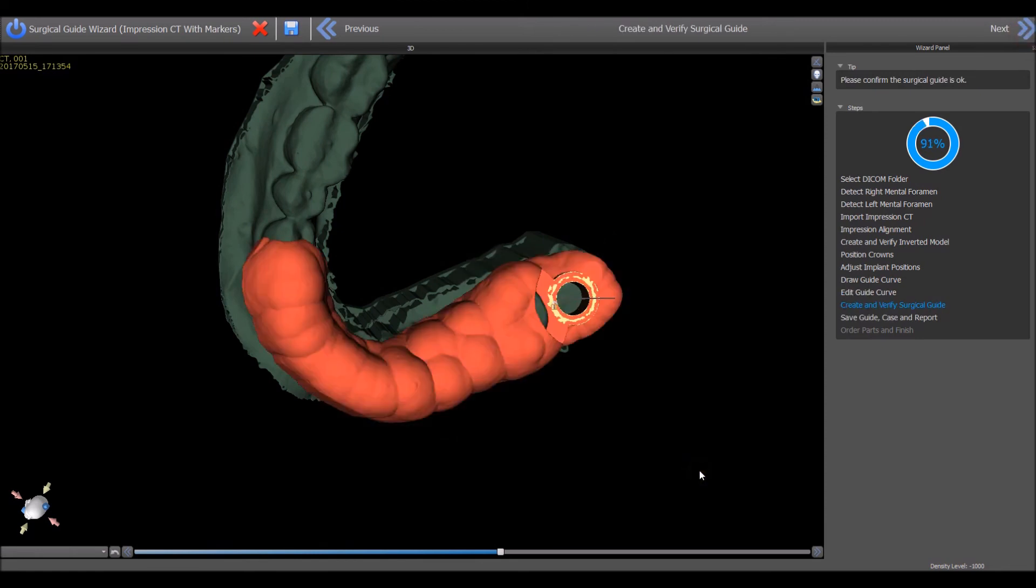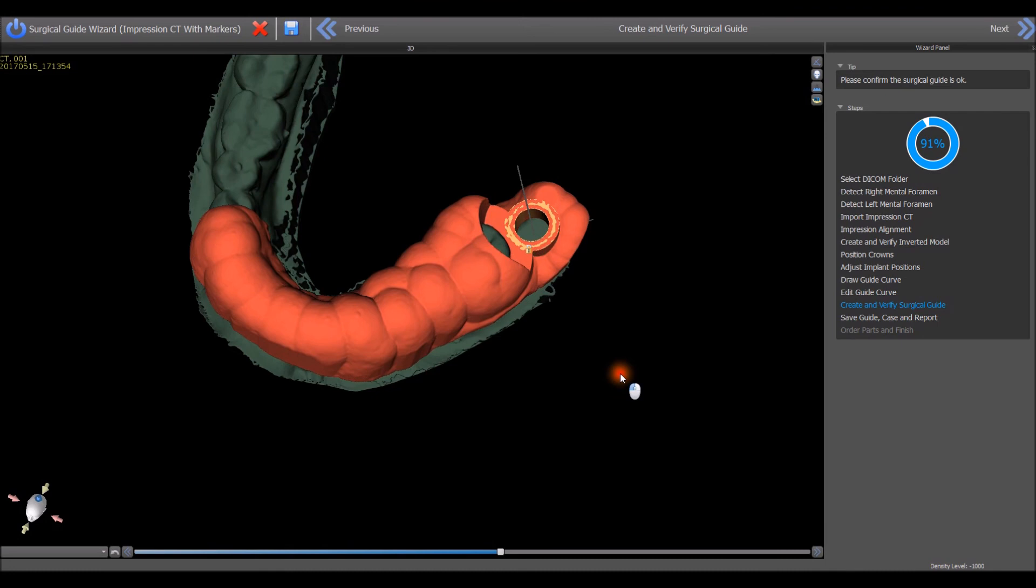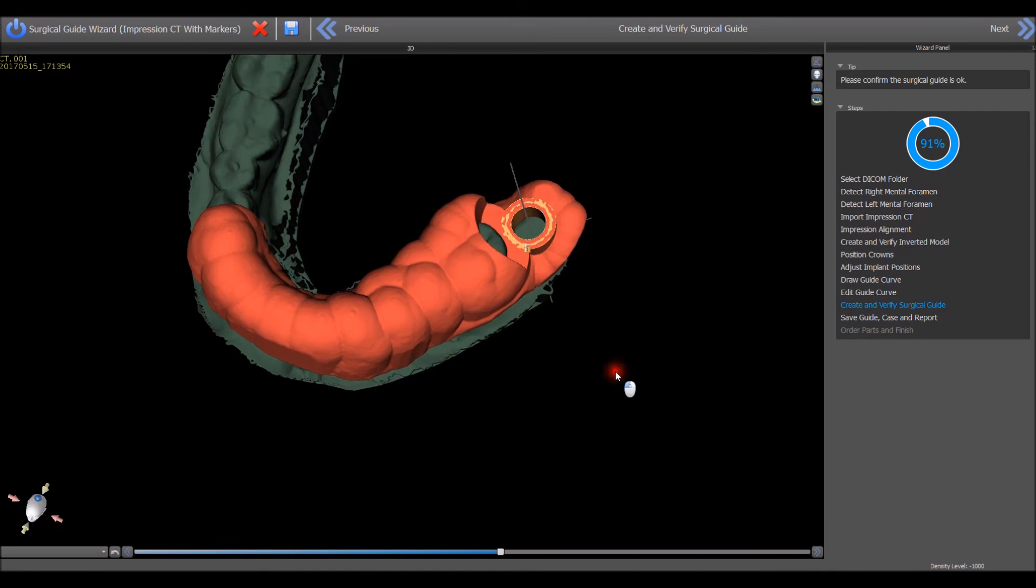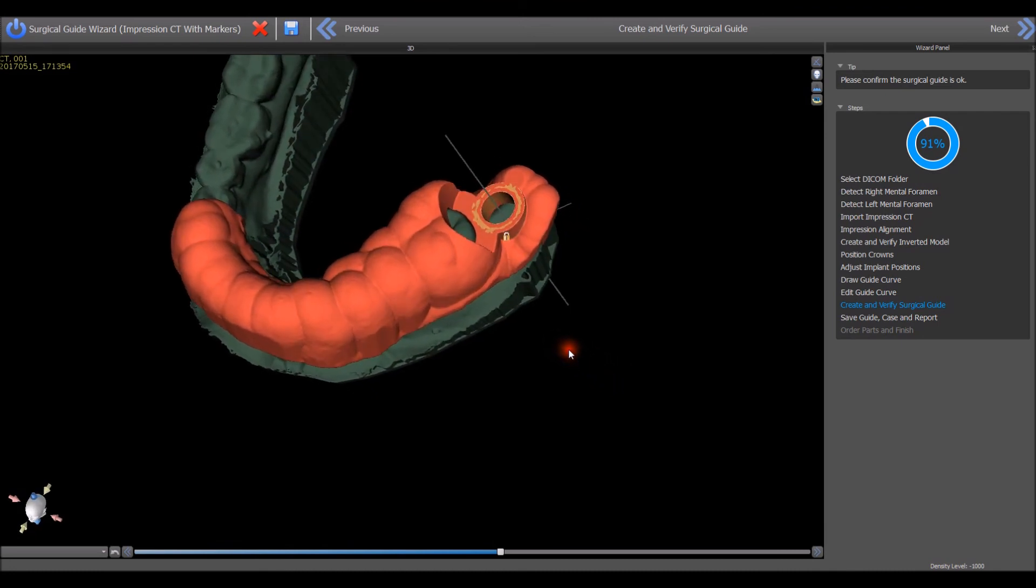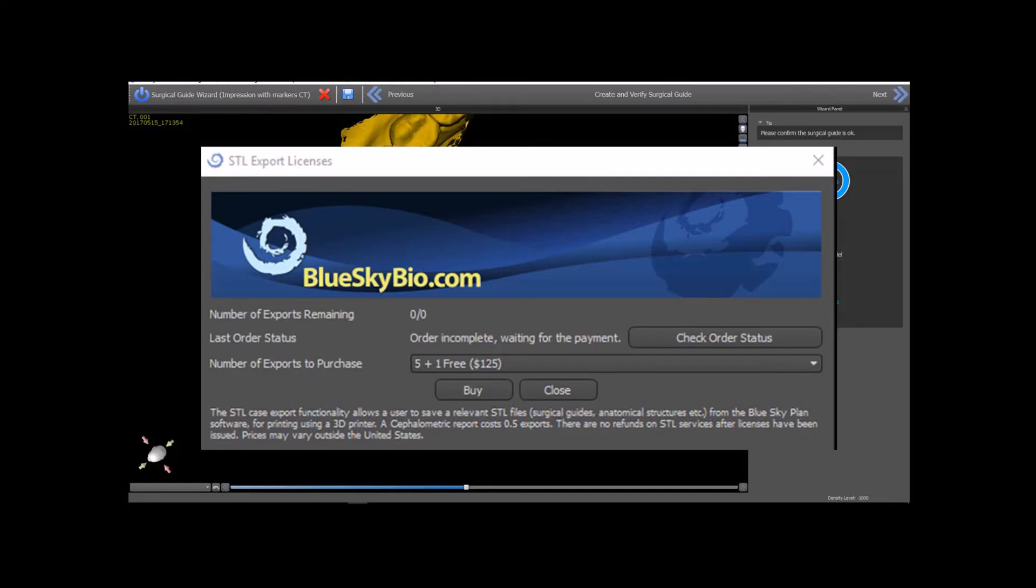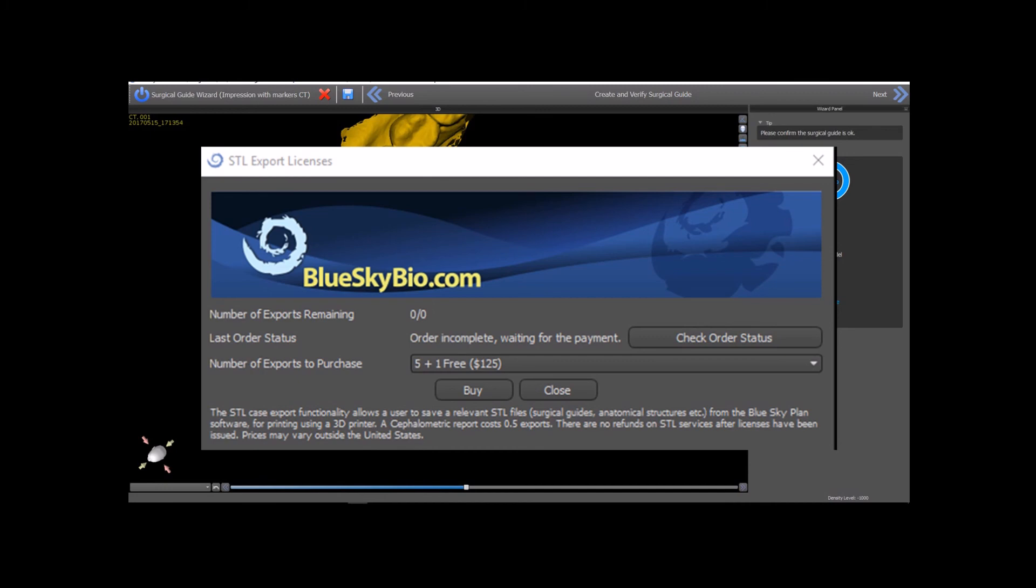Review the fabricated surgical guide. Hold the left mouse button and move the mouse to grab and rotate the surgical guide and model. In order to save the file of the surgical guide to your computer for 3D printing, you are required to buy export credits. If you do not have export credits, the software will prompt you automatically and payment can be made via PayPal or credit card directly via the software and the software will update automatically and immediately. Case fees are between $11 and $20 per case depending on the quantity of exports ordered.